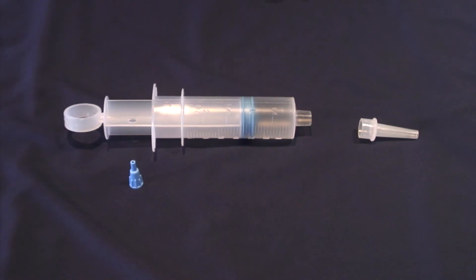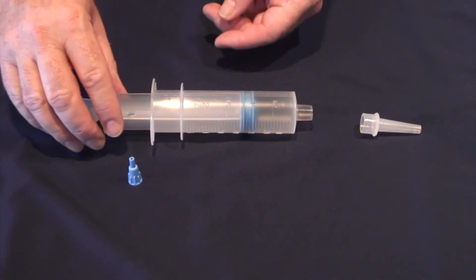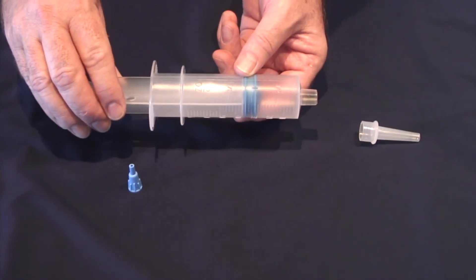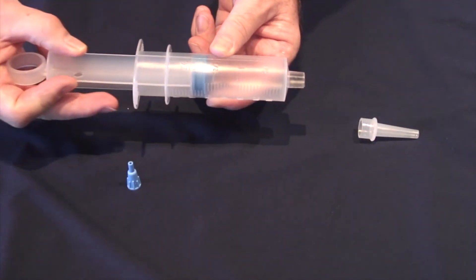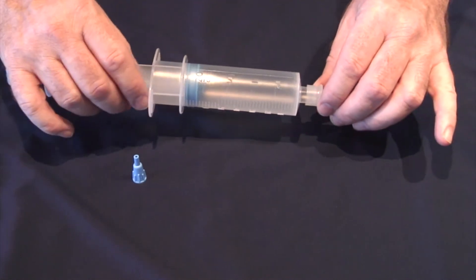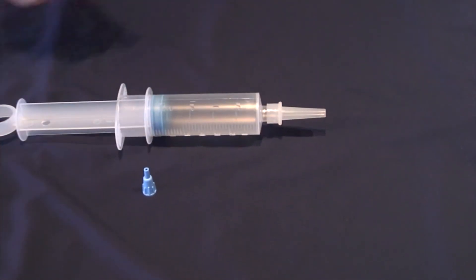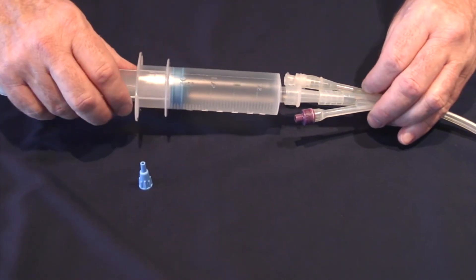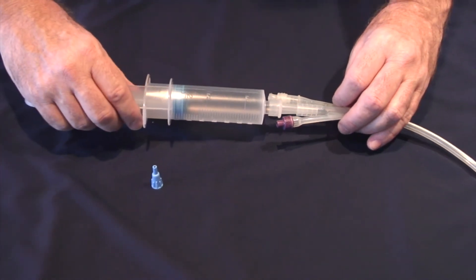This is a bladder irrigation syringe. In this configuration it may be attached to a resectoscope or a cystoscope in the operating theatre for aspiration to be carried out. When the cone tip is applied it may be attached to a catheter for manual washout of debris, clots, and other such collections.